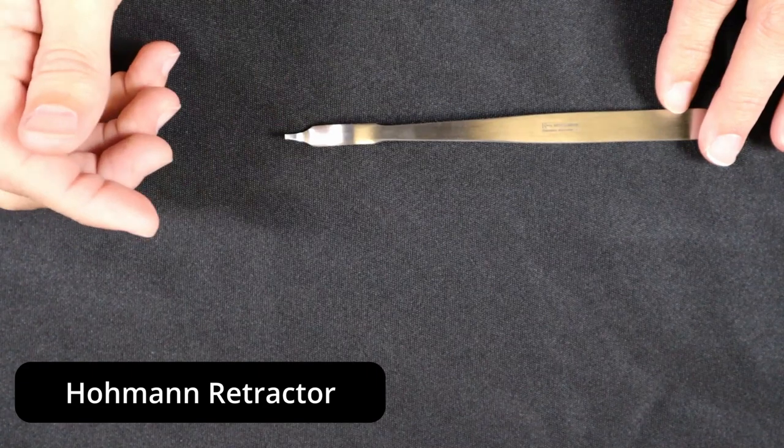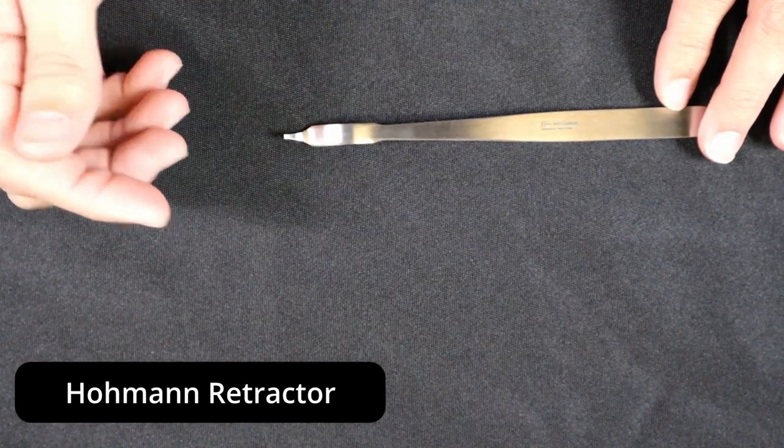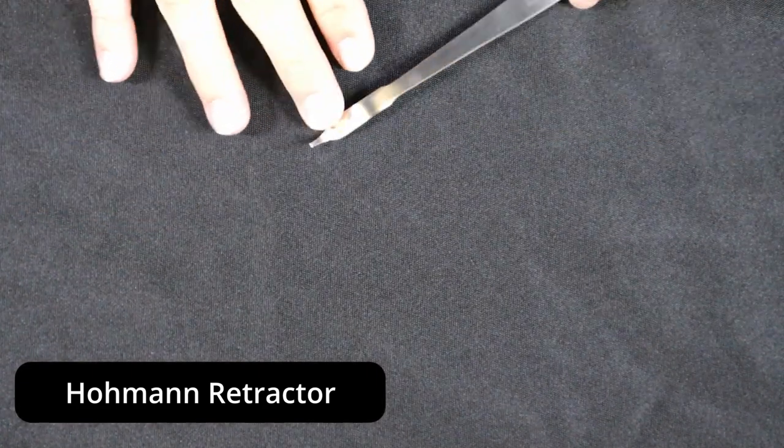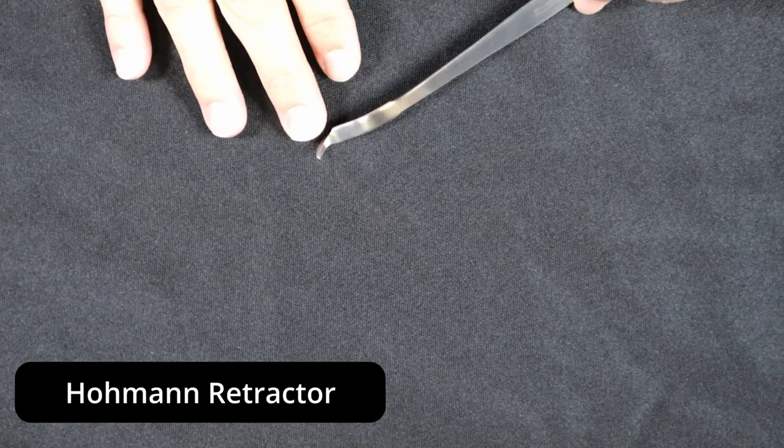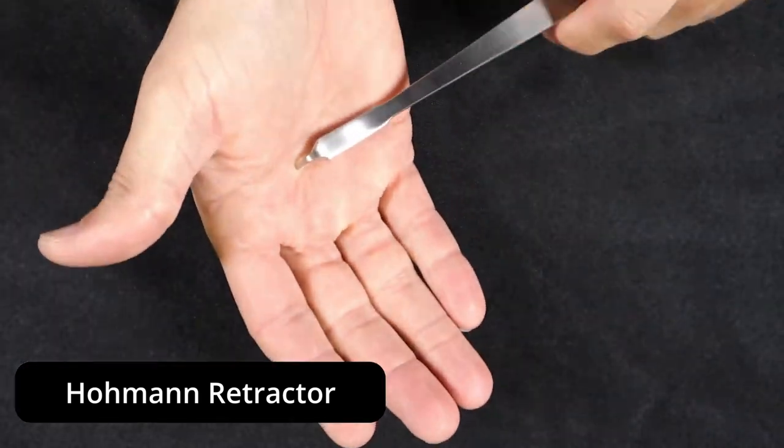As you're inspecting and identifying your Hohmann Retractors, it's important to keep in mind that the tip does need to be in good operational condition.